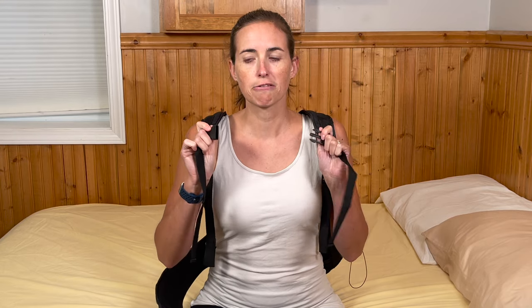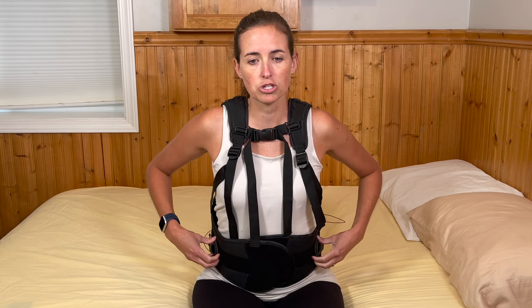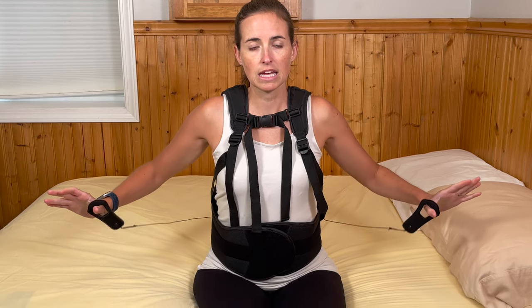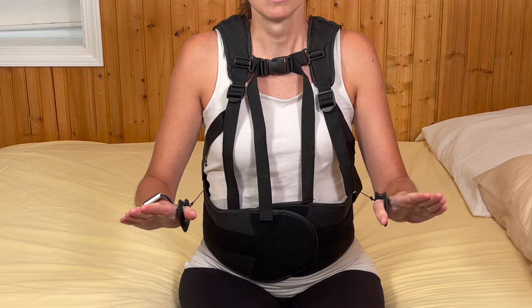I keep my eyes straight ahead because it's much easier not to twist that way. I'm not going to tighten the shoulder straps yet — I'm just going to find the chest clip and clip it in place to keep them from falling off while I do the rest. Now I locate the bottom portion of the brace and take a deep breath in. The reason I take a deep breath in is I want to have my lungs full to know that I can take a deep breath with the brace tight — you don't want to over-tighten so that you can't take a good deep breath. Now I identify the lower straps, put my thumbs in them, take another deep breath in, drive straight forward with both straps, and then cross them.